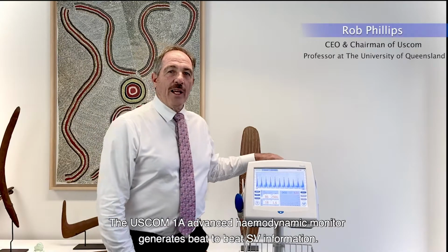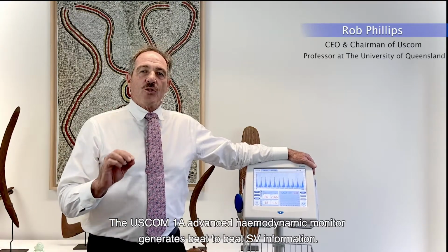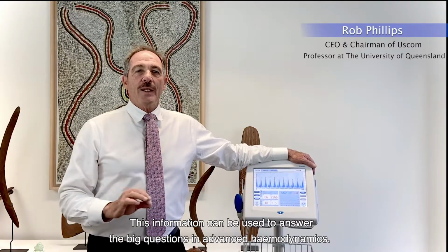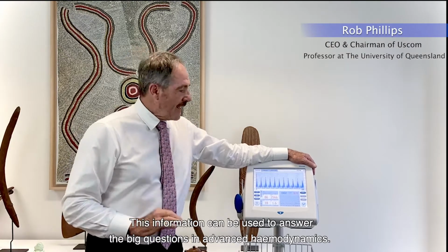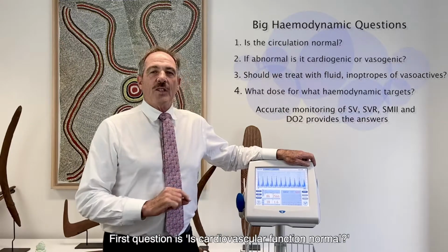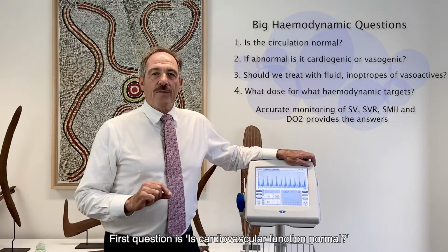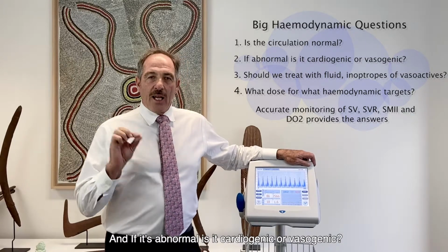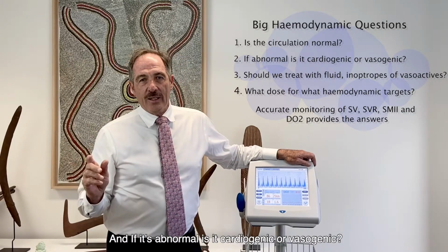The Uscom 1A Advanced Haemodynamic Monitor importantly generates beat-to-beat stroke volume information. And this information can be used to answer the big questions in advanced haemodynamics. First question: is cardiovascular function normal? And if it's abnormal, is it cardiogenic or vasogenic?